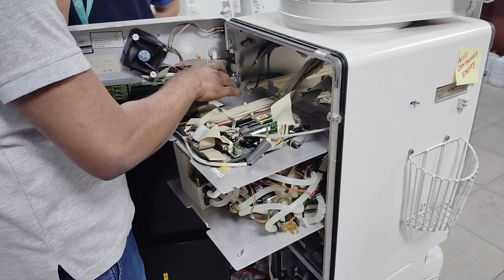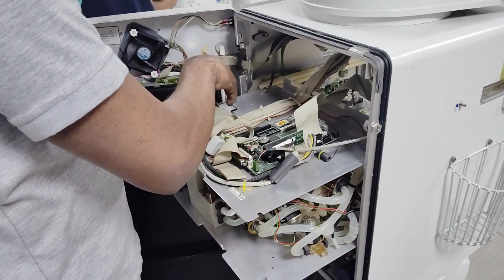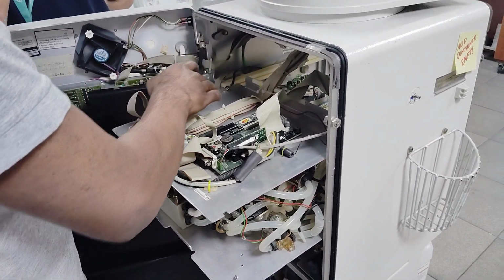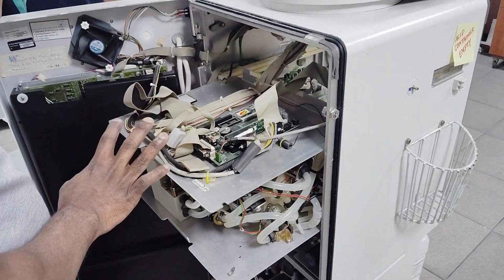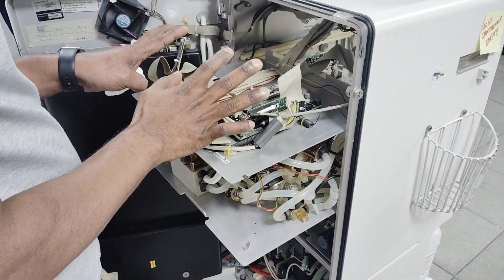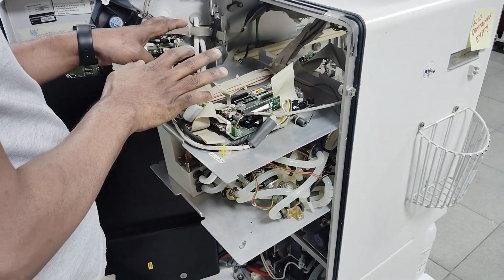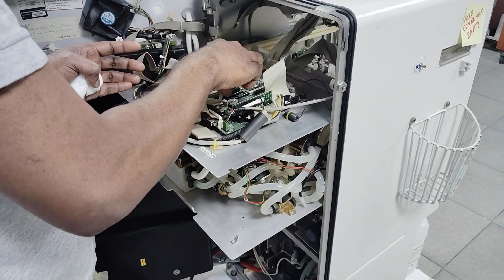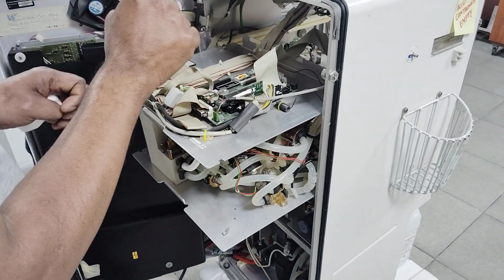All the programs we are installing will be saved over there in this card. If it were a hard disk, it would be saved in the hard disk, but we don't have a hard drive in this one. So the motherboard will also keep our program, and there is communication between them, so they communicate with each other. All the data are saved, and the CMOS battery is there, so it will keep your data saved.